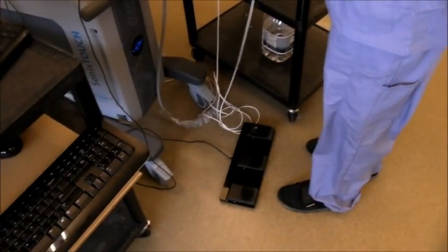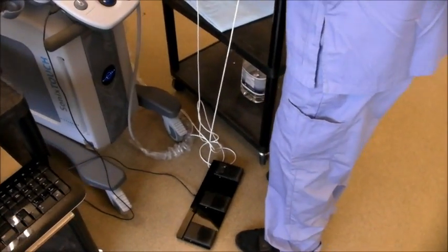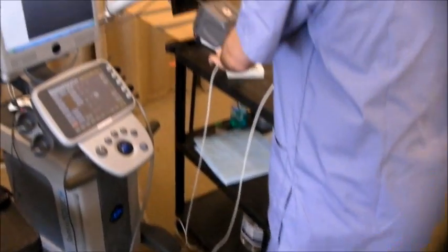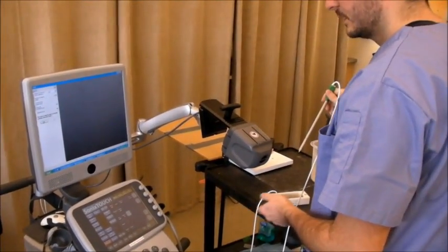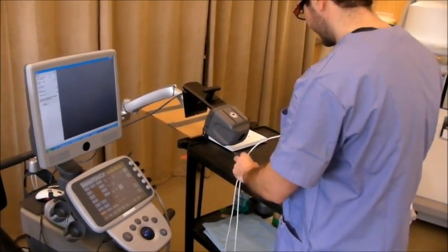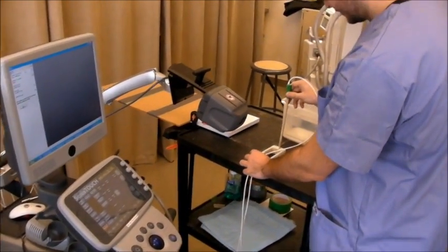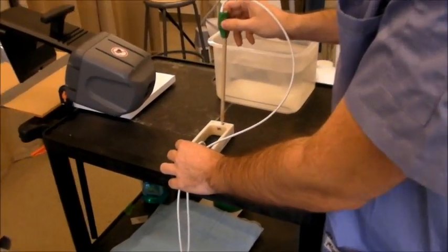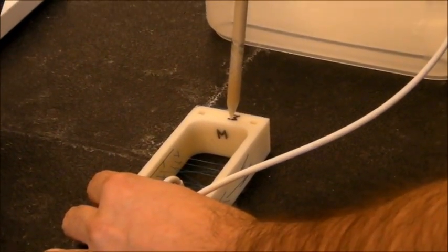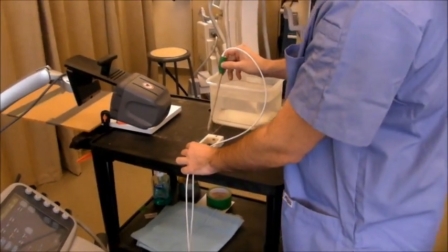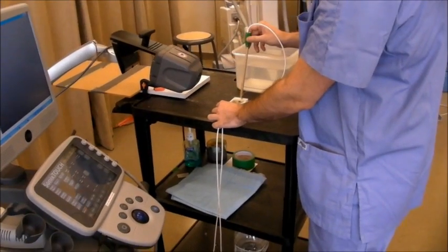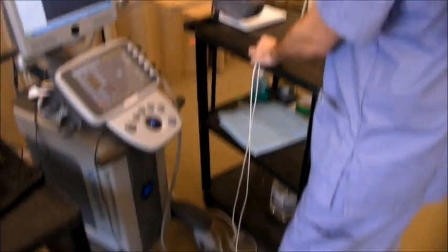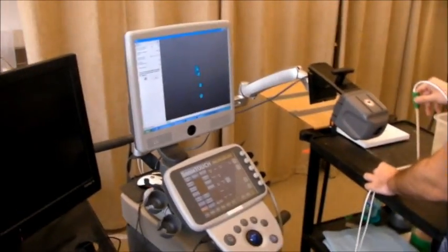I'm using the foot pedal to press buttons on the user interface, but you can ask anybody to press the button for you. I'm fixing the stylus tip to a point on the Phantom. This is practical, because the Phantom is the reference, because this sensor is attached to it very firmly. I'll start the calibration.